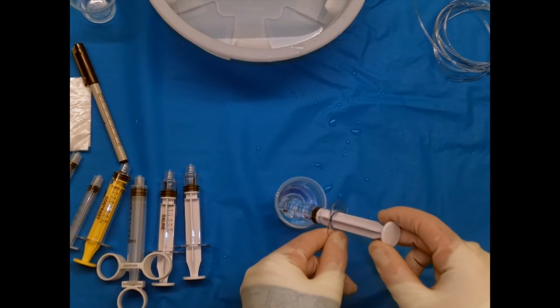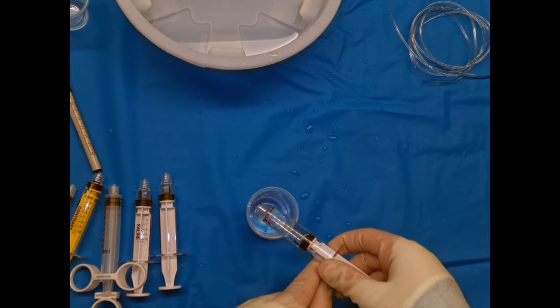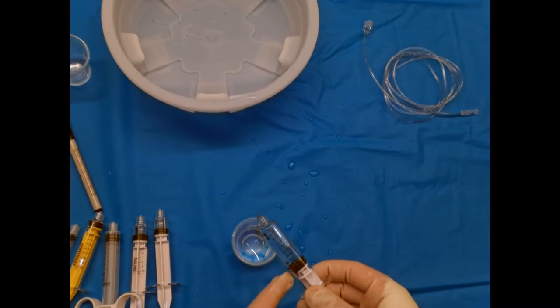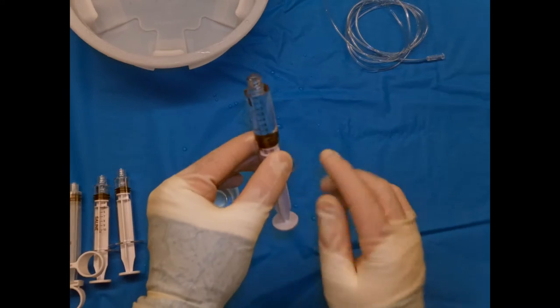And then we're not going to pull back all the way to 10 cc's, the maximum. We're always going to leave room—and I'll show you here why—but then we're going to tilt. We see you have some air.